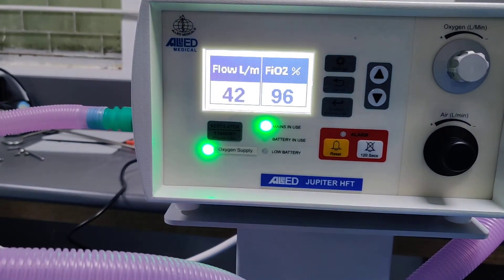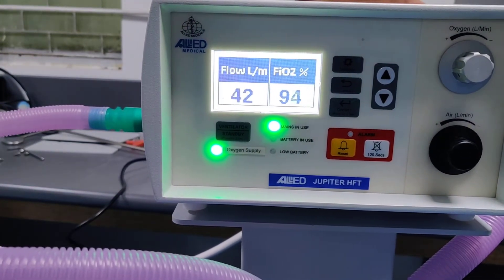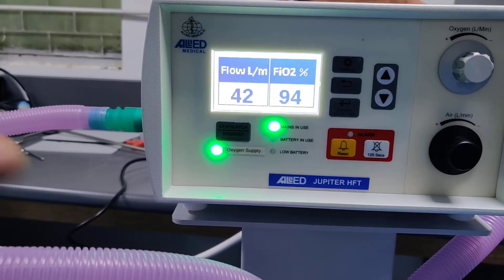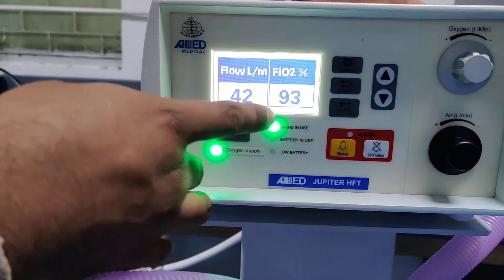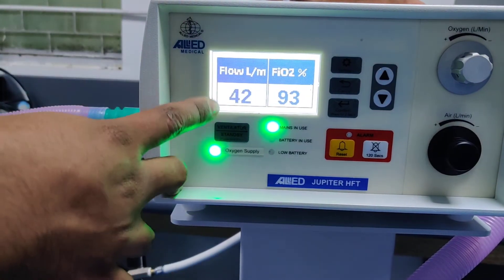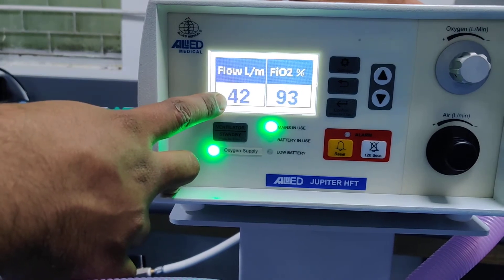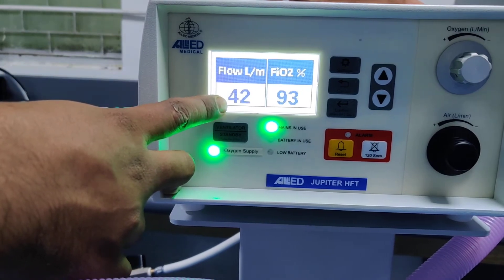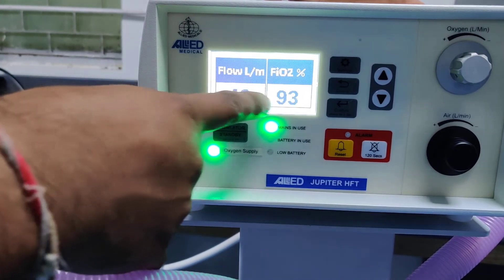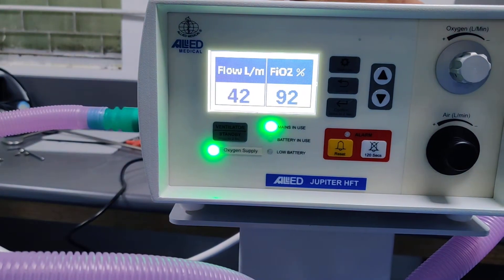This machine is equipped with a 3.2 inch monochromatic display which shows the FiO2 value being given to the patient and the flow rate. These are the 2 settings and 2 measurements available on this machine.